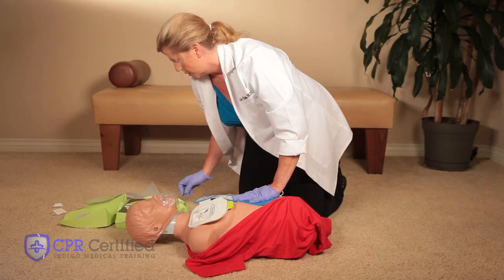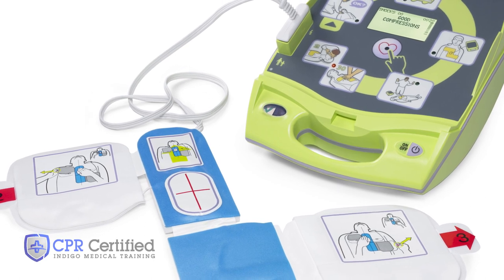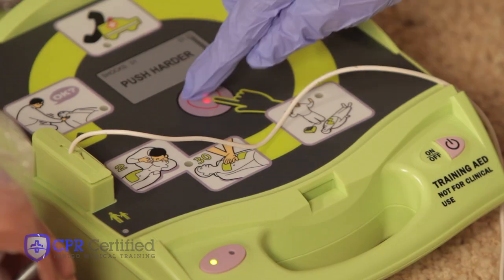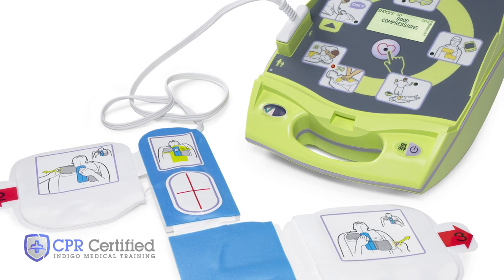If the AED advises you that shock is advised, it's important not to touch the victim during the shock. It will loudly say: shock advised, don't touch patient, press flashing shock button. Then push the red heart or electric bolt button once. The AED will prompt you by saying rhythm restored or shock delivered, start CPR.